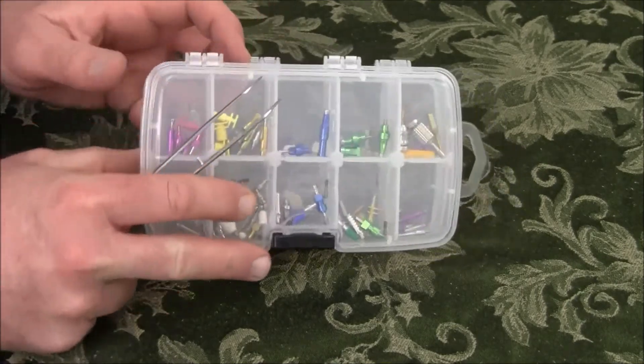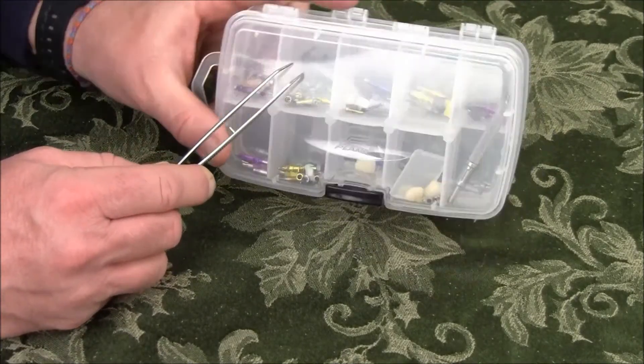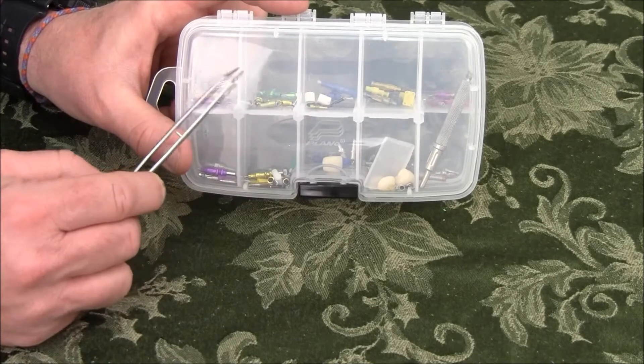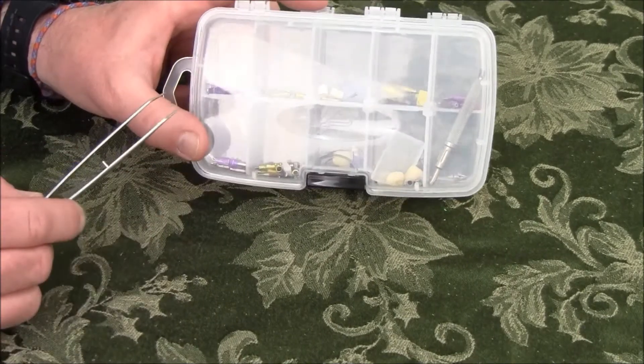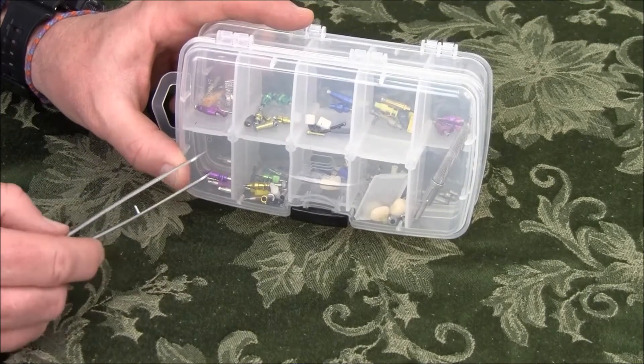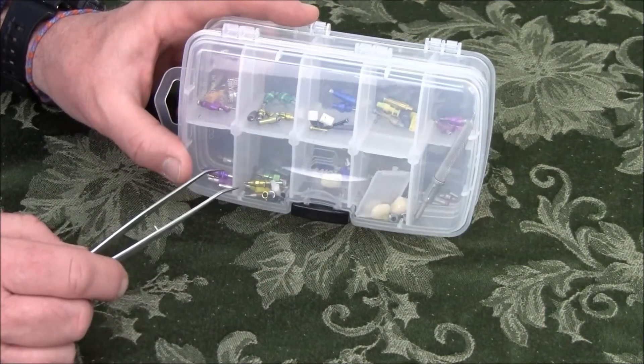On the other side is the conical connection from Nobel. I don't need as many compartments because I've got only narrow platform and regular platform.